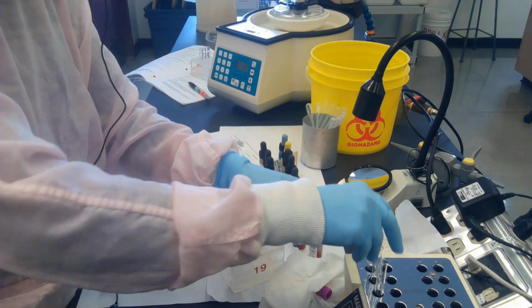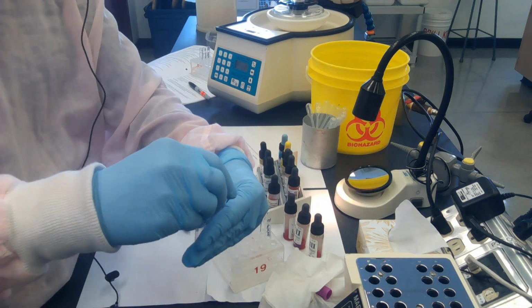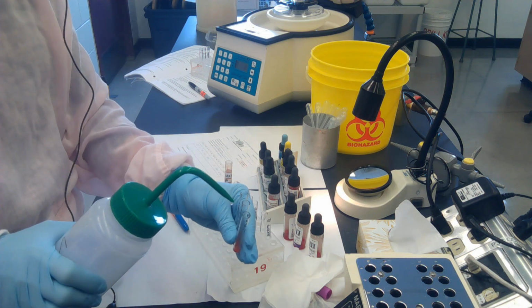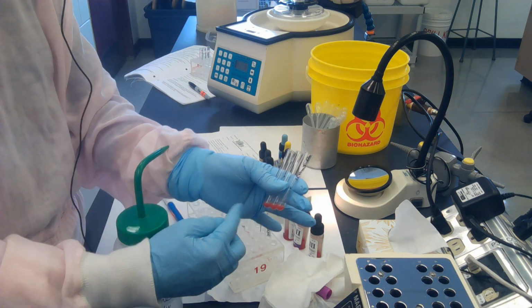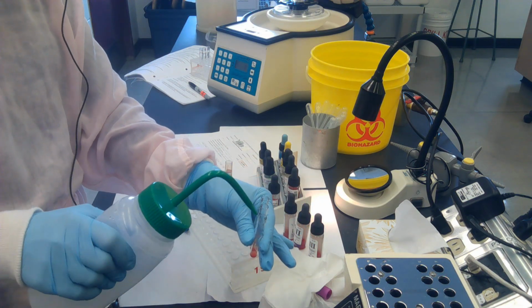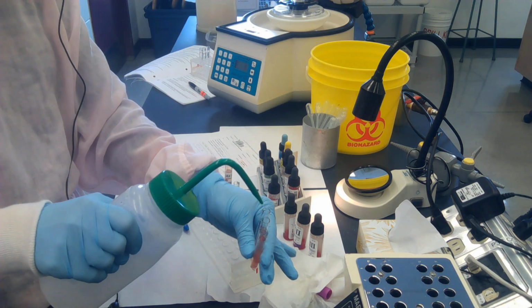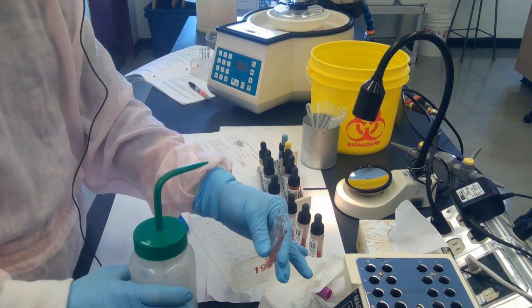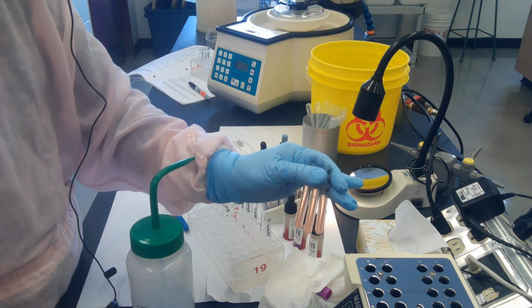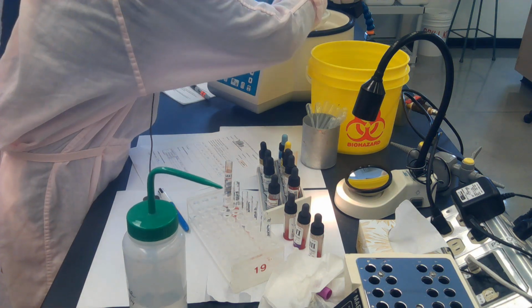So I'm going to take my tubes out, and I'm going to forcefully add saline. I'm going to begin my 3 washes. So, nice forceful addition. The hope is that all these cells down here will get distributed all the way up the tube so that all cells are washed. So, nice forceful addition of saline to each tube. Not too bad. And in for 45 seconds for the wash cycle.